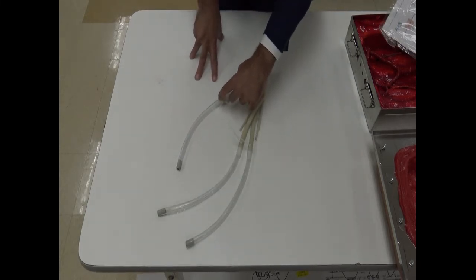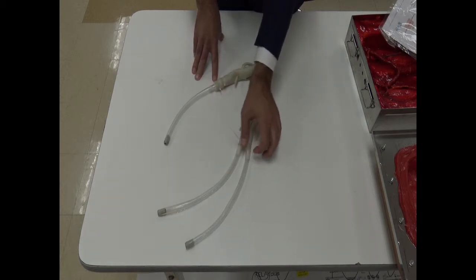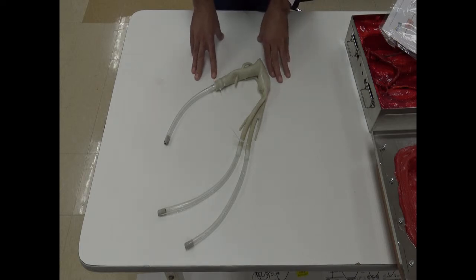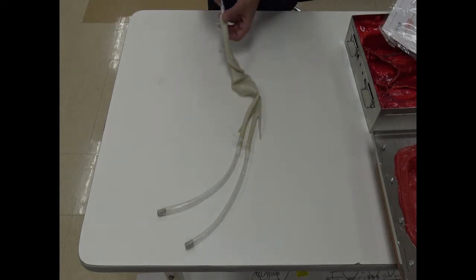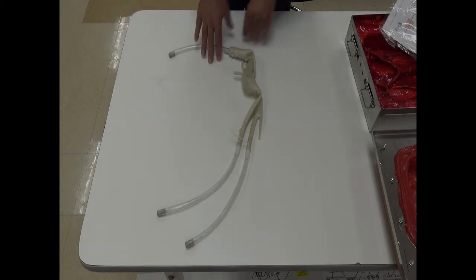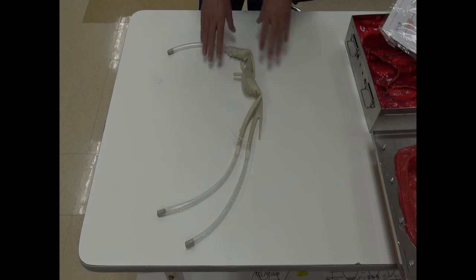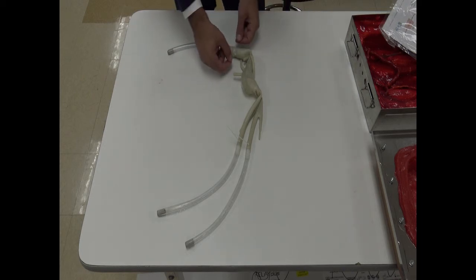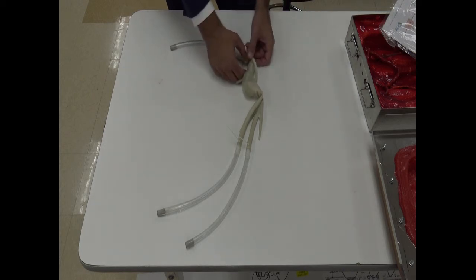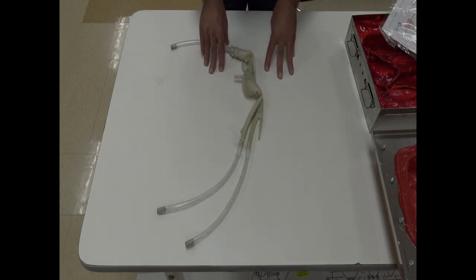Remember, one larger for your proximal aorta, and then 2 smaller for the common iliacs. Then you can start connecting all the components with your zip ties, so you have that nice and ready. As soon as they have finished with the previous simulation, you just perform an exchange on the tubes, which makes it much easier than putting the aorta and tightening the zips every time.